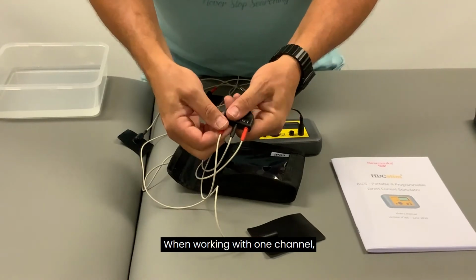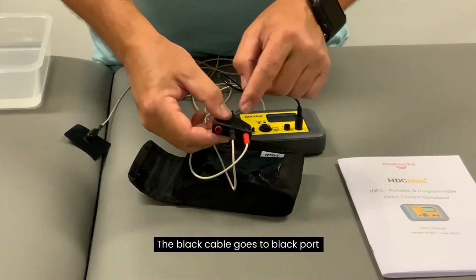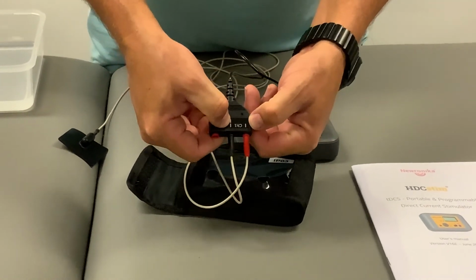When working with 1 channel, which applies for most patients at home, the black cable goes to the black port, and the red cable goes to the red port on the channel 1 side.